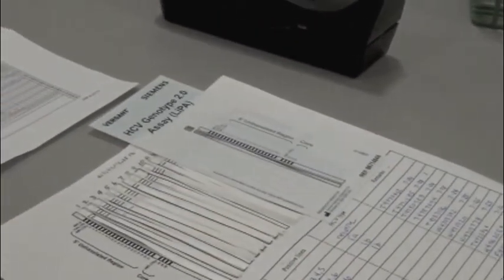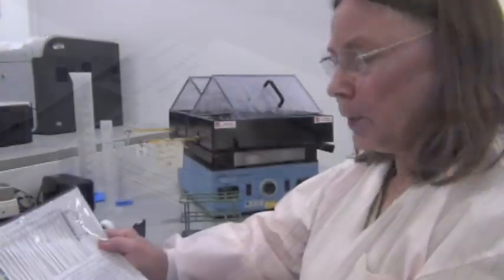Oh, that's how you do it. That we just saved and ran again. Dr. Yen will enter it in the computer, and then we're finished with that. And these results will be going out today. Okay, thank you. All right, thank you.